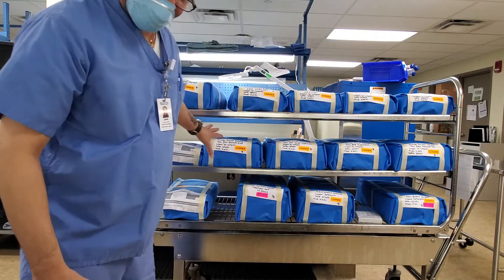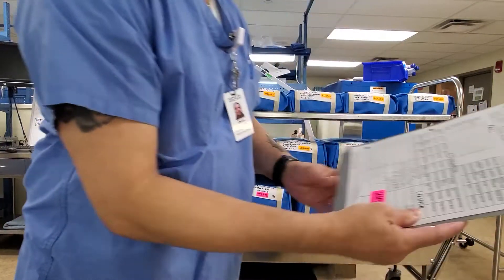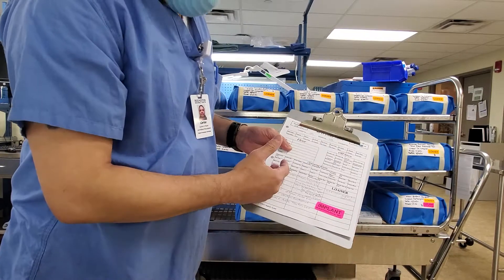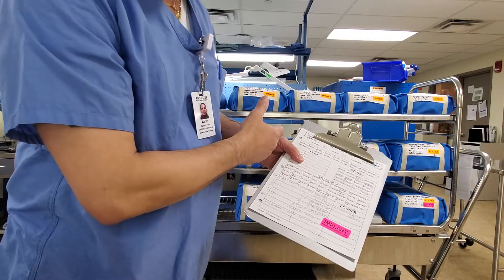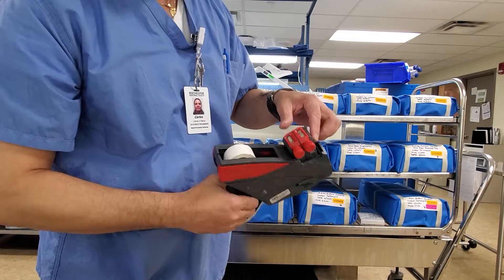What I do is get everything ready for sterilizing — this tray or instrument for surgery. We have a paper with all the information about what it's about, in case something happens so we can come back and find out what's wrong or how many trays there were. We put on the label: the day, the month — in this case, two, three.